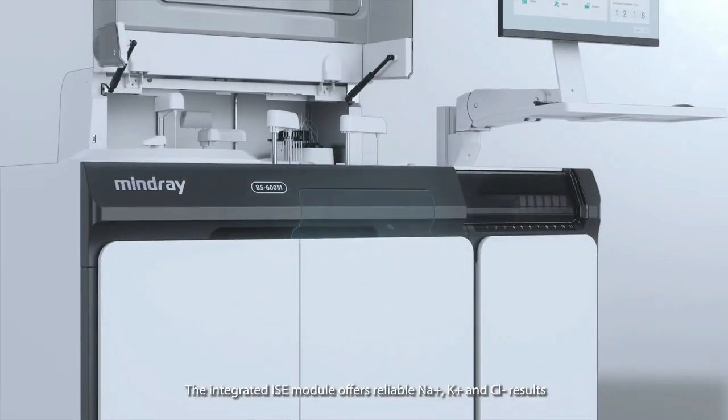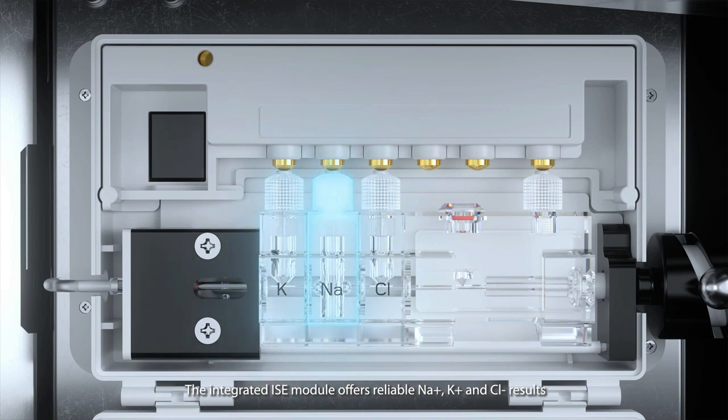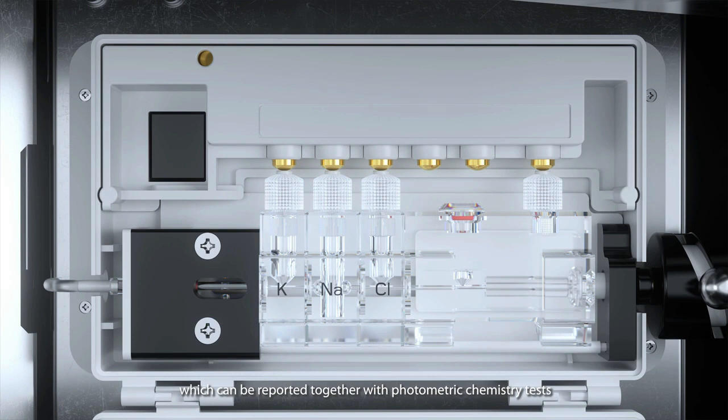The integrated ISE module offers reliable sodium, potassium, and chloride results, which can be reported together with photometric chemistry tests.